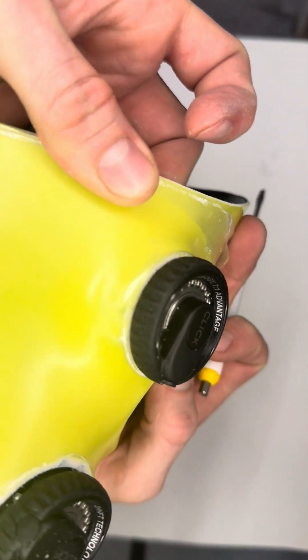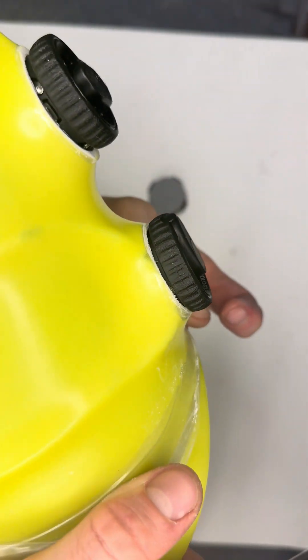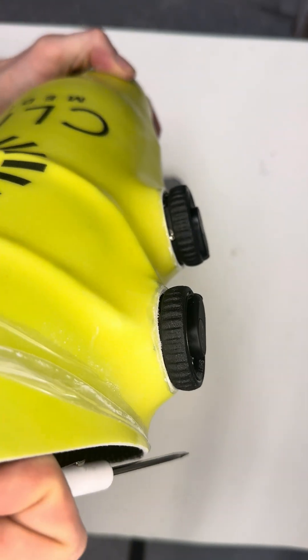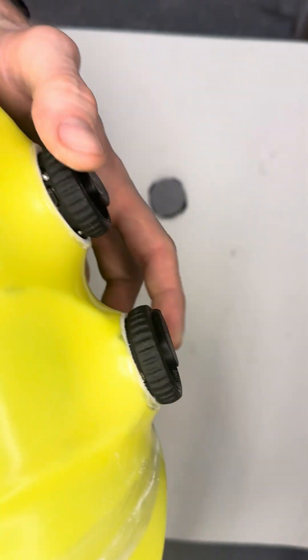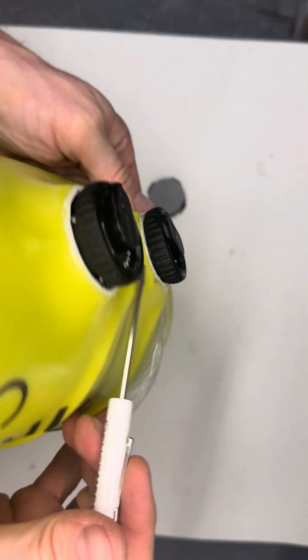On this reel, it's completely flush. We didn't take down the level of that composite material all the way to the Click Reel, so it's kind of a guessing game as to where that retention tab is.